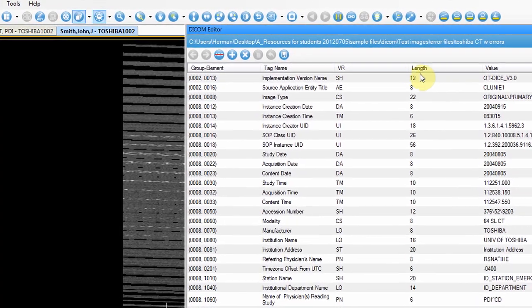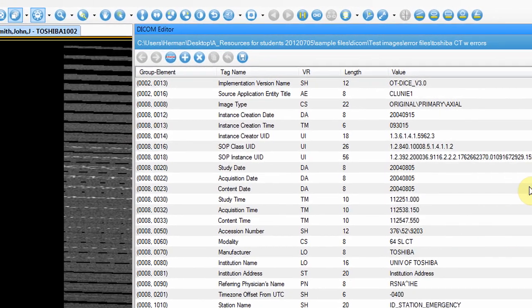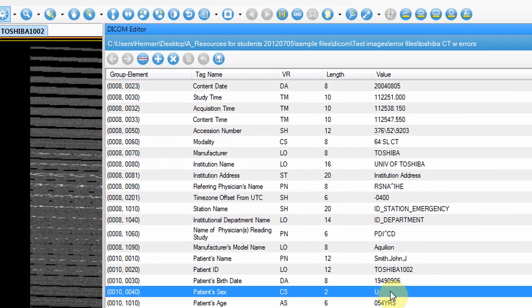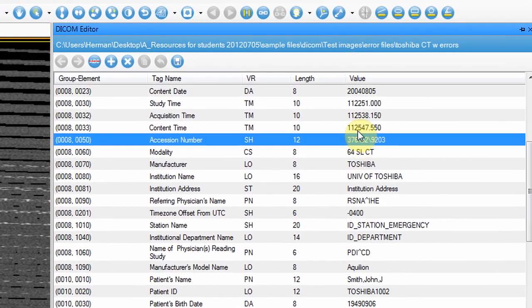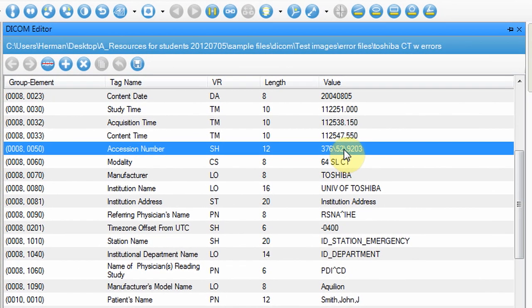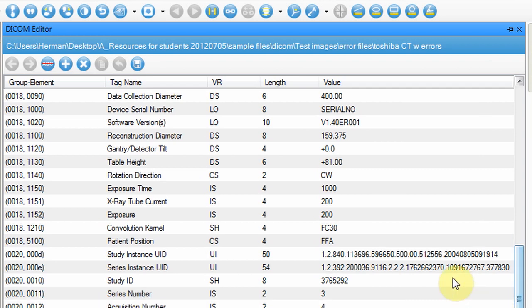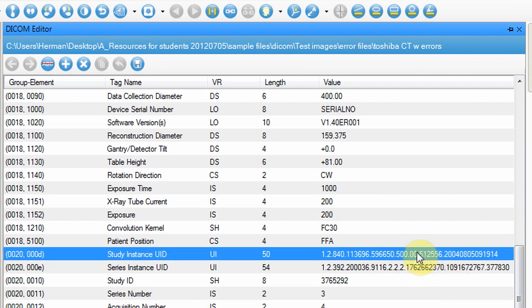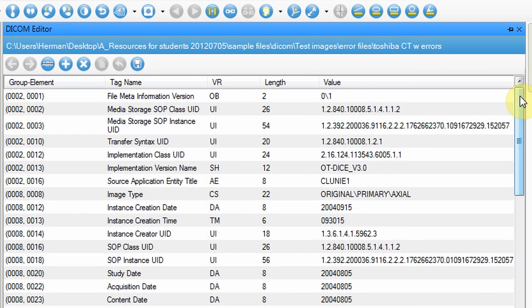We may need to adjust the display a little bit. After we've done that, we see, for example, that the patient sex — the age — is 'U', which happens to be an invalid value. The accession number has backslashes: it's 376 backslash 52 backslash 9203, which is also invalid. And if you go down a little bit, you'll notice that the study instance UID has a double zero, which is also illegal. These are some of the obvious things you might spot, but a better way of figuring out what is wrong is by using a DICOM validator — so you don't have to be a DICOM expert; the validator will do the work for you.